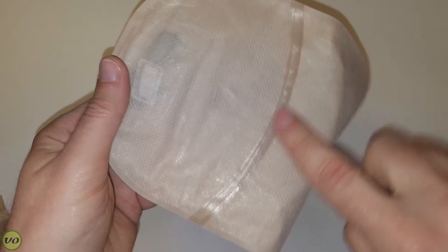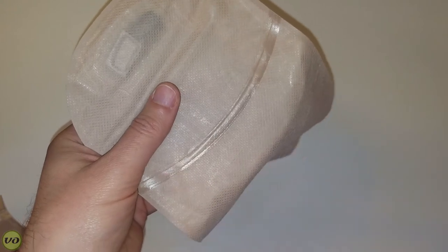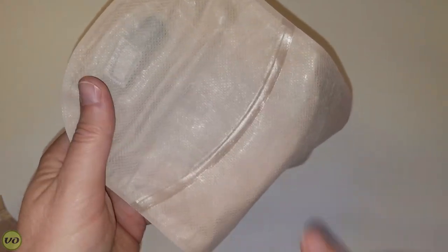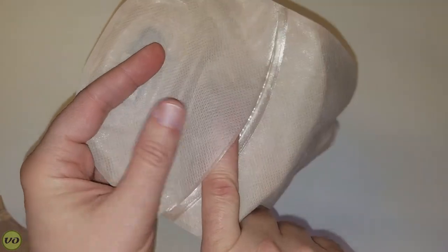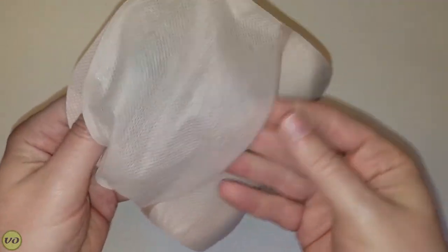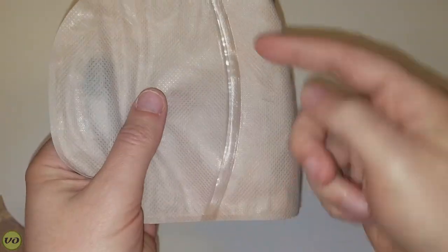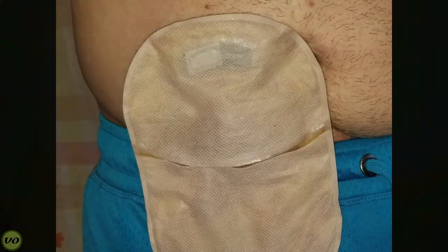The inspection window meets with the rest of the pouch flush, and I don't think that's the best design — I'd prefer the bottom fabric to be under and the top to overlay it. As your pouch fills and you're moving around and the material warms up, you'll notice the output and a brown color visible in between. It doesn't look great, and personally when I'm seeing the output at the bottom in the mirror, I just know it could be better.